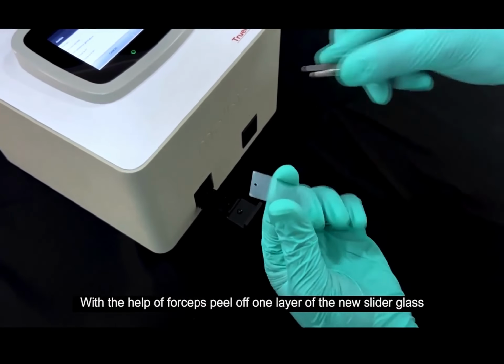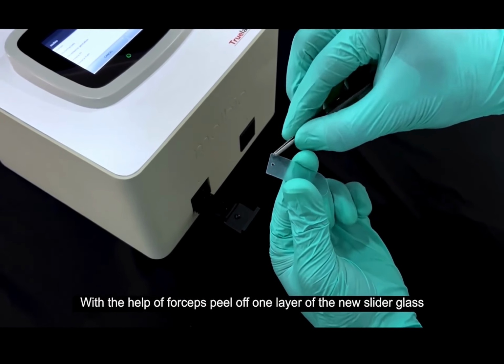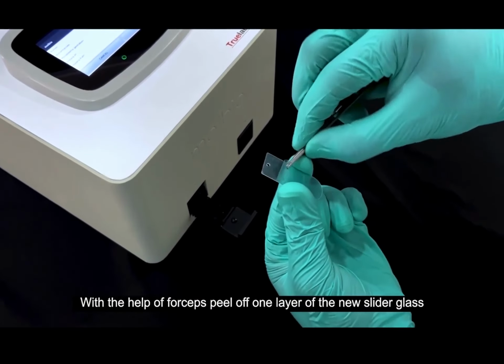Please hold the slider glass from side to side only. We don't want to introduce any fingerprints or any dust on the top or bottom portion of the slider glass, which will interfere with the PCR reading. Then with the help of the tweezer, you can remove this protective plastic layer.